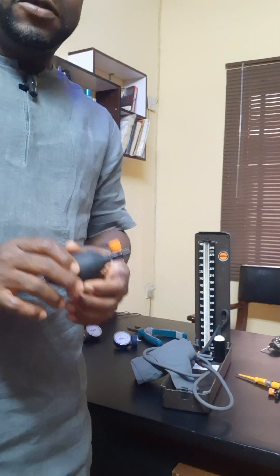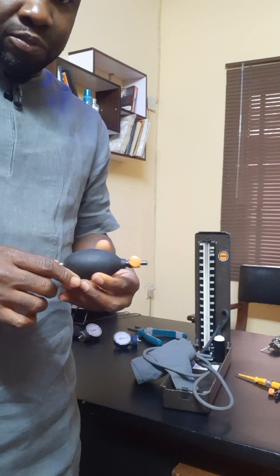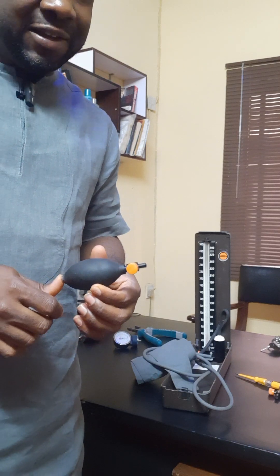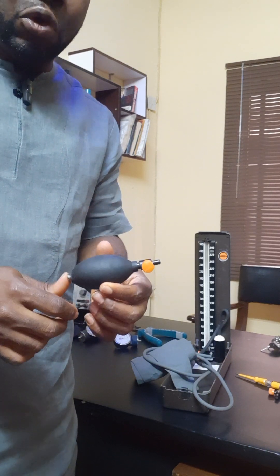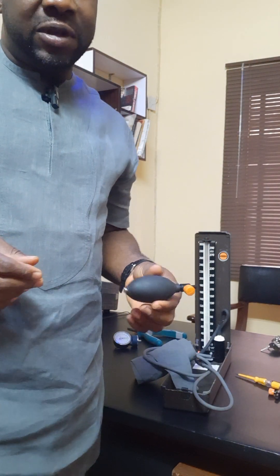If I compress it and hold the valve here under — if it's okay, it will retain its compressed form. But if it is not okay, it will come back to its original form. So let's do the practical test.